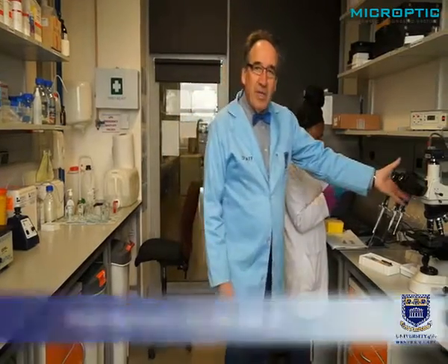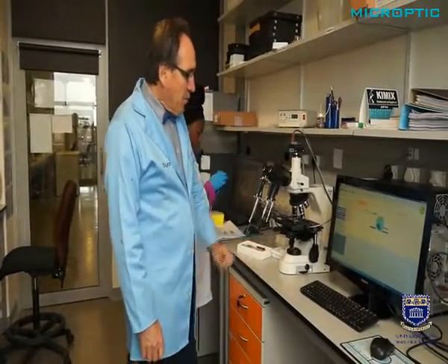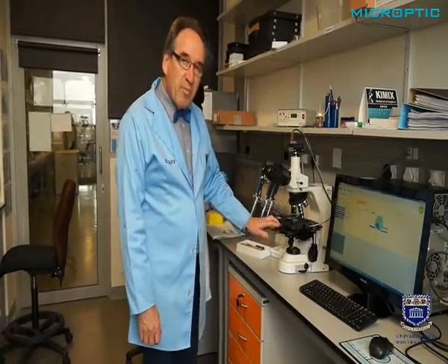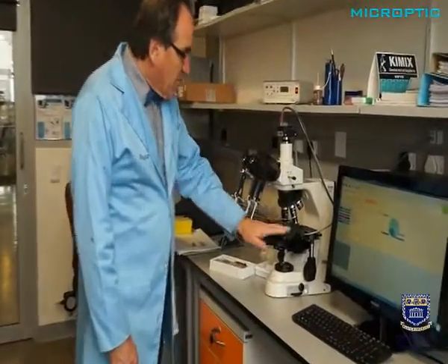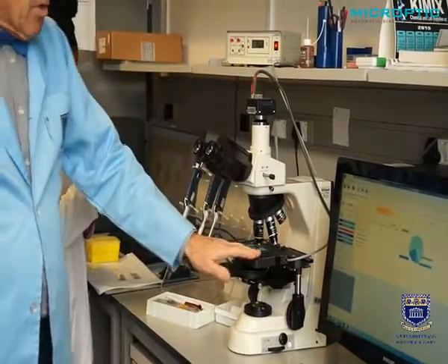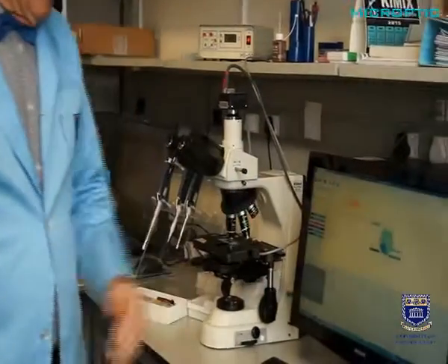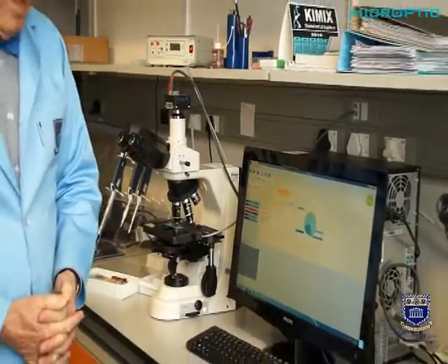First of all, we need a good microscope. And there are a couple of very important points here, and that is that the microscope must have phase contrast microscopy for human sperm, positive phase contrast microscopy, and also the stage must be heated. And here we have the controller for heating the stage. This is crucial. You cannot just work with the stage at room temperature. Of course, a camera that feeds into the computer, and the images are captured here where it is analyzed. We will come to that detail later on.